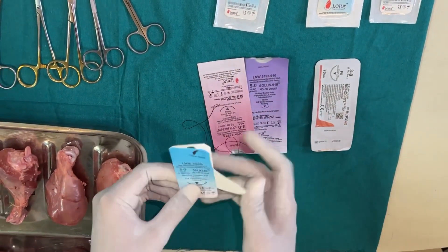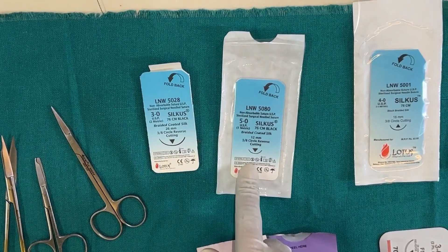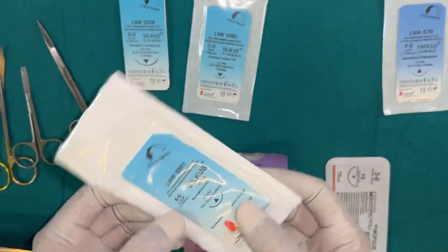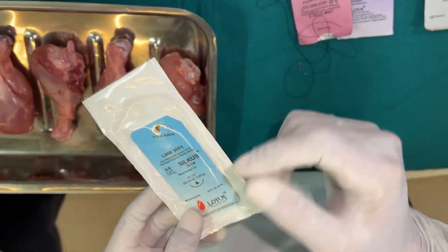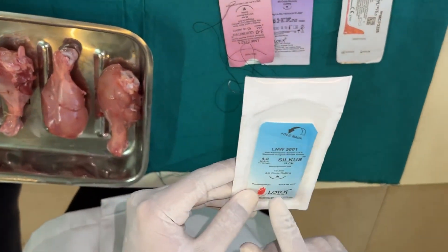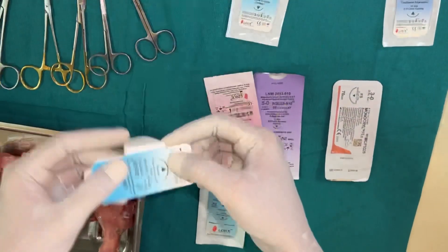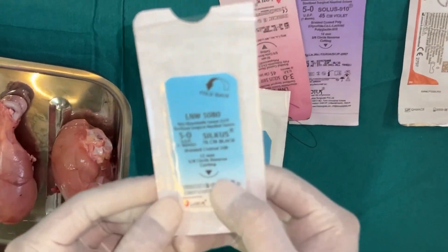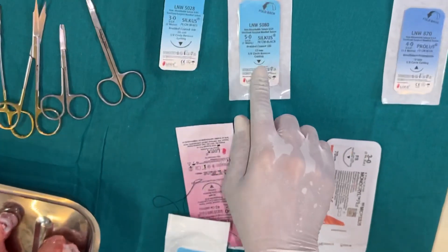To summarize: 3-0 is for full-thickness flaps and 5-0 for partial-thickness. A 4-0 suture is a practical compromise — usable for both. A 16mm needle is the sweet spot between the 26mm needle needed for posterior areas and the 12mm needle used for anterior or mucogingival surgery.